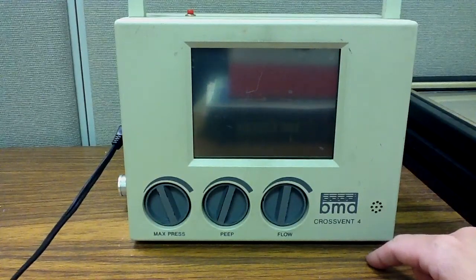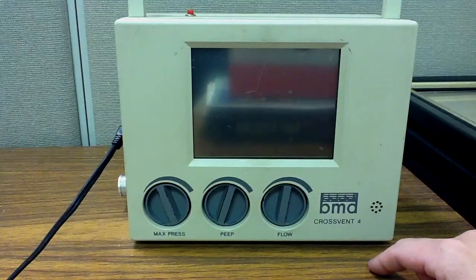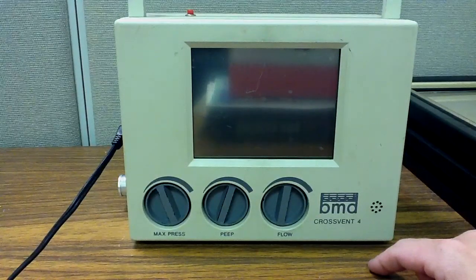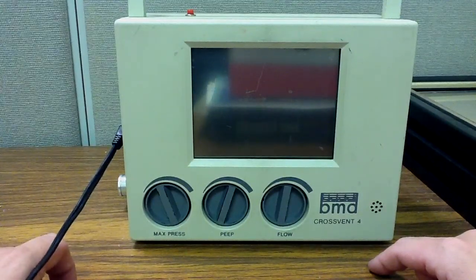It is a little different in the way that we control the I:E ratio than certain other types of ventilators, certainly the LTV-1200. So let's go ahead and look at the external characteristics of the ventilator first.